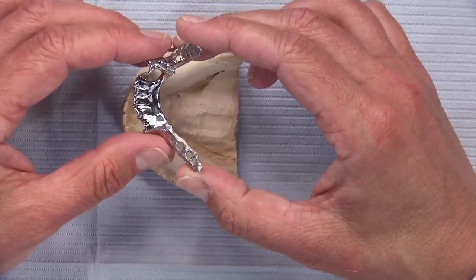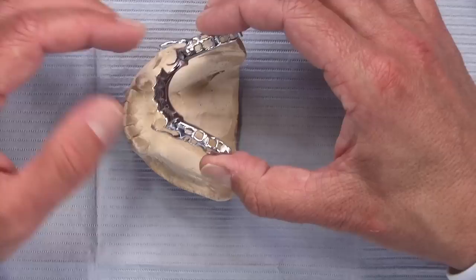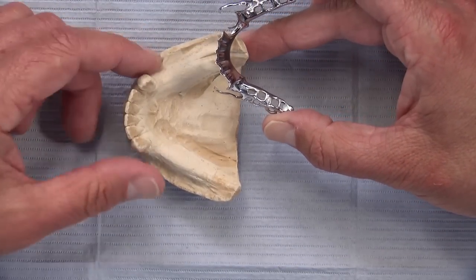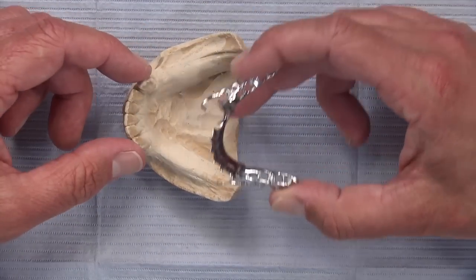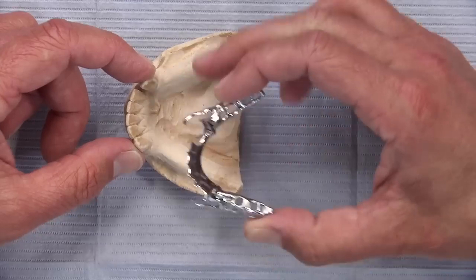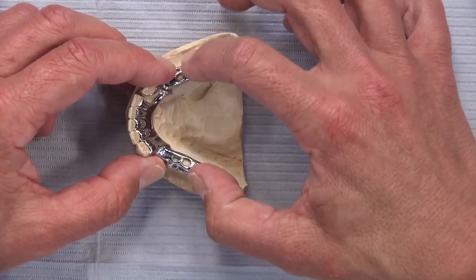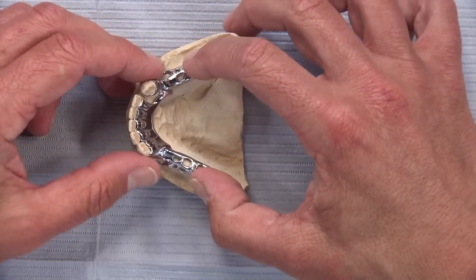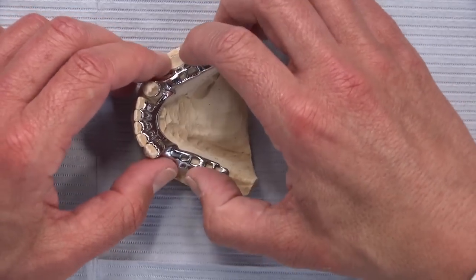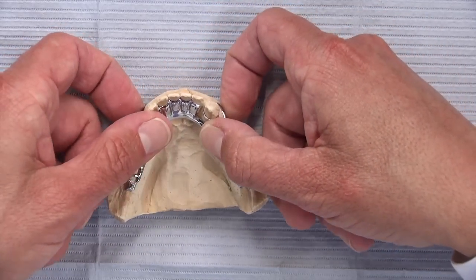They designed this partial denture using a lingual plate major connector because there was really no room for a lingual bar, and the patient could sure use a cingulum rest on 22 and 27. If prepped well and the partial fabricated well, these stops will resist the punishing lingual movement as the patient loads the posterior denture teeth. When prepping those lingual rests, you just want to be careful not to create any undercuts.